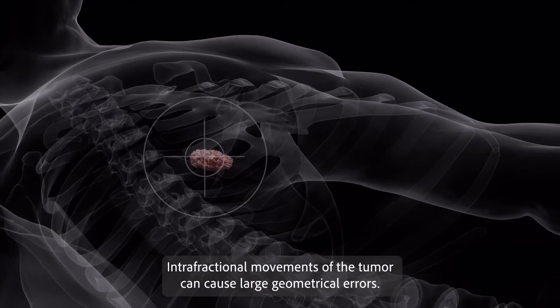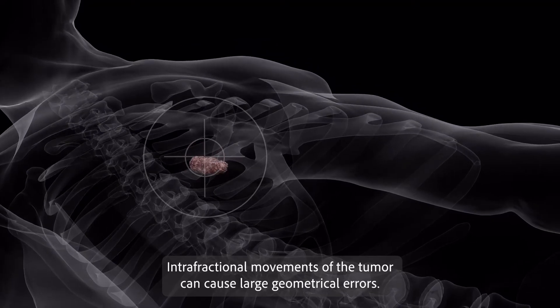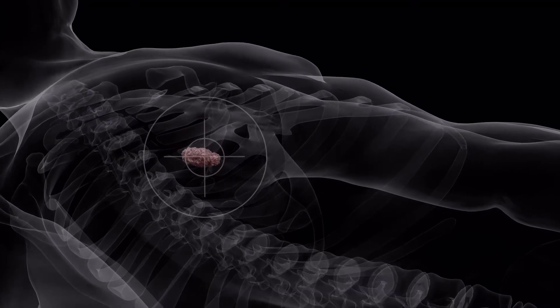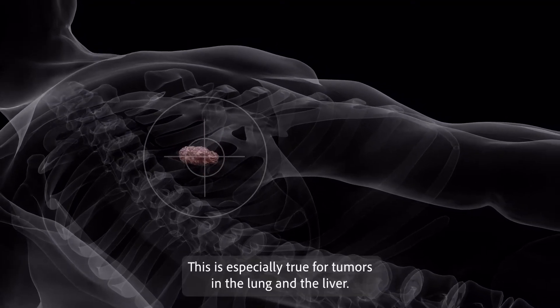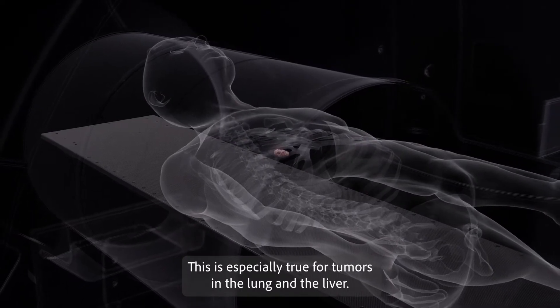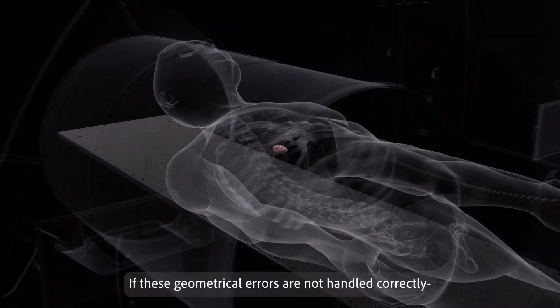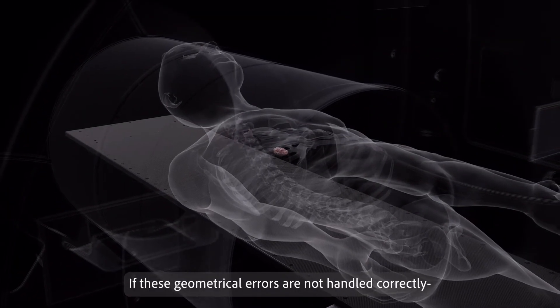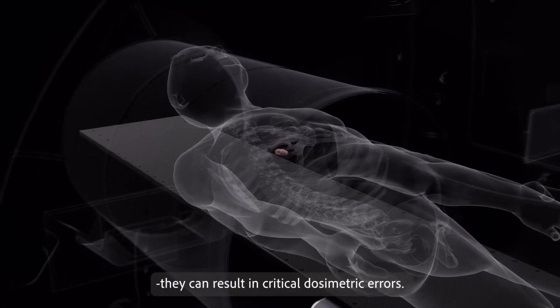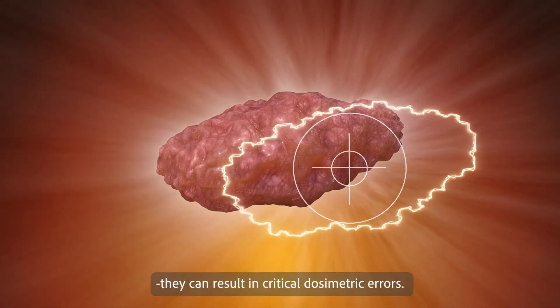Intrafractional movements of the tumor can cause large geometrical errors. This is especially true for tumors in the lung and the liver. If these geometrical errors are not handled correctly, they can result in critical dosimetric errors.